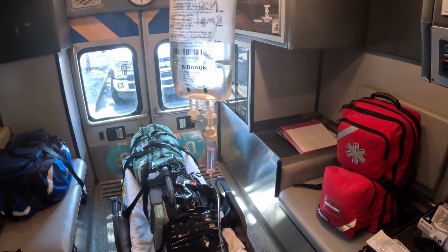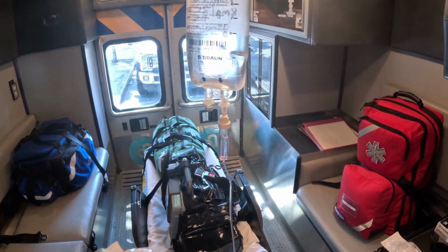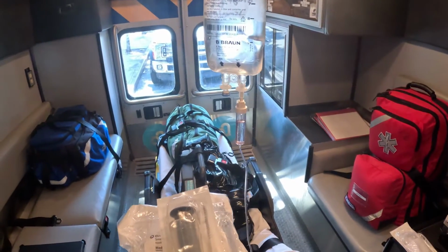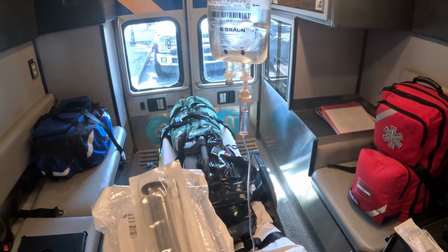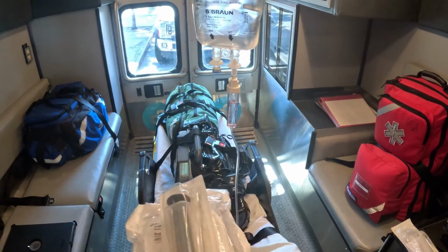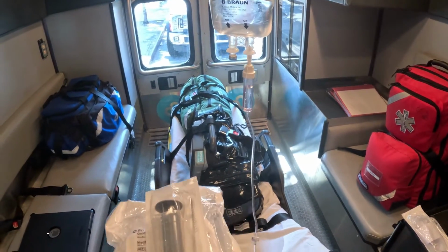I do not want to disconnect my patient off the pump. So the syringe method allows you to acquire your medicine and not disconnect the patient off the pump, so they have minimal downtime. Their BP is not going to drop, it's not going to tank, they're not going to go into cardiac arrest. And it allows me to set up my pump, initiate the medication, and then when I'm ready to transition, it's a quick turnover.